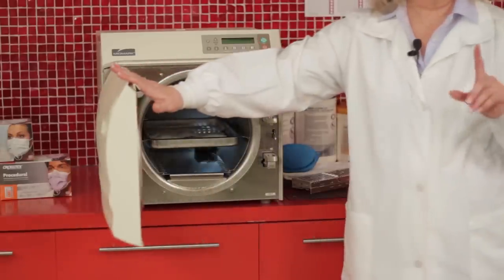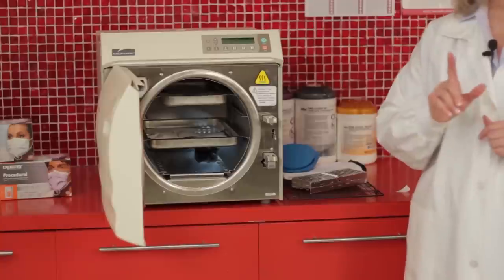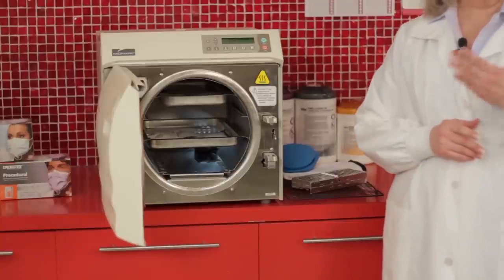At the end of the cycle, it's important that we wait 10 minutes because the liquid inside that vial is 121 degrees Celsius.